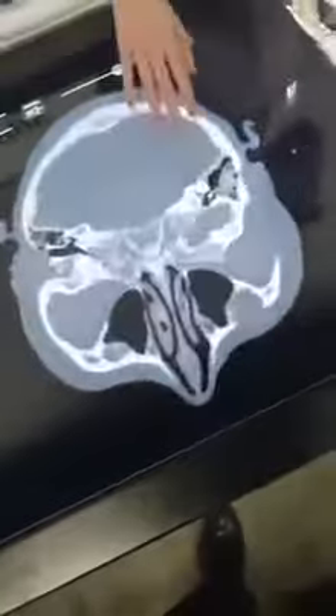What's most interesting is you can load in your own patient data — your MRI scan — and from there get a 3D model of what you see. Here we have a post-operative scan of a patient with a brain aneurysm, and this is the actual CT that was provided. You can slide through the CT and see exactly where the clips were placed.